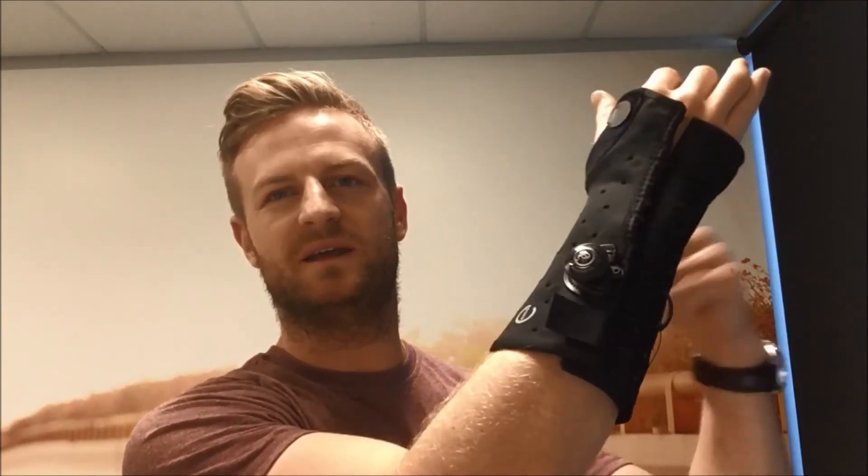The difference is, as you can see, it's lightweight and very low profile as opposed to our bulky and heavy plaster cast. On top of that, it's waterproof — you can get it wet, you can swim in it, you can surf in it, you can pop it in the shower. All you need to do is loosen it off a little bit and you can dry any moisture out from under there, which allows you to control bacteria and it's much more hygienic.